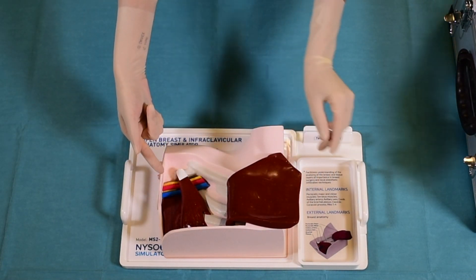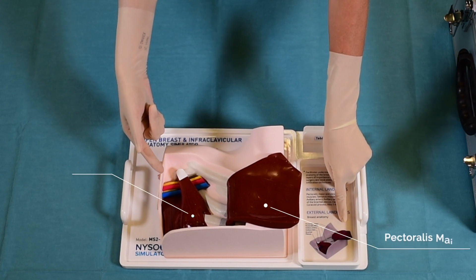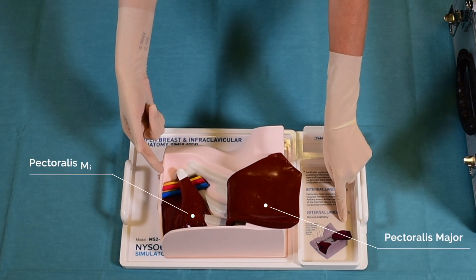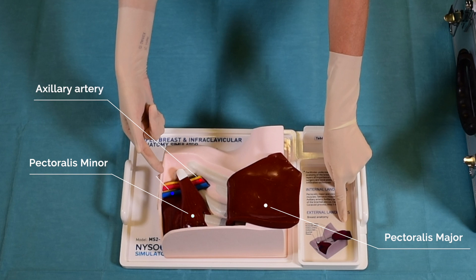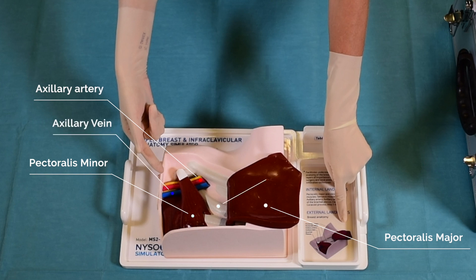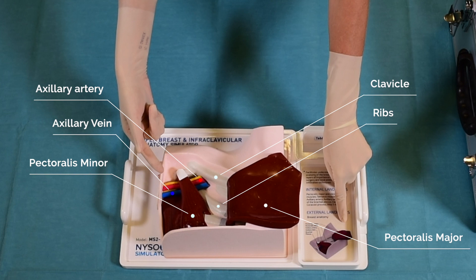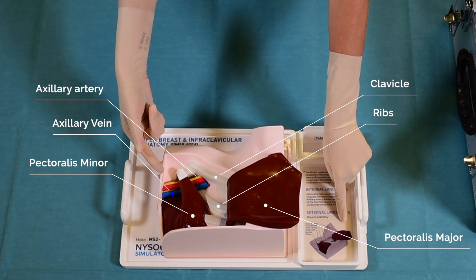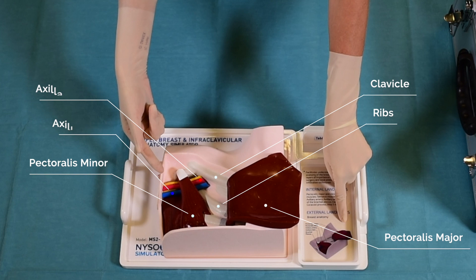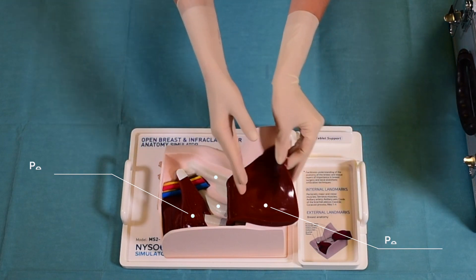This simulator can be used by peeling back the tissue layers, such as pectoralis major and pectoralis minor muscles, to expose the axillary artery and vessels underneath. The layers can be put back and removed as many times as necessary until the student ingrains and understands the essential anatomy of the infraclavicular fossa, pectoralis muscles, and infraclavicular vessels.